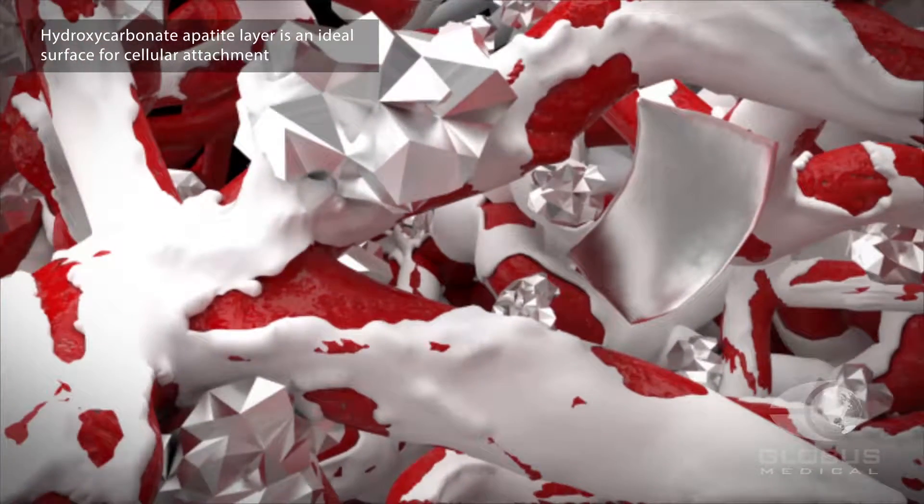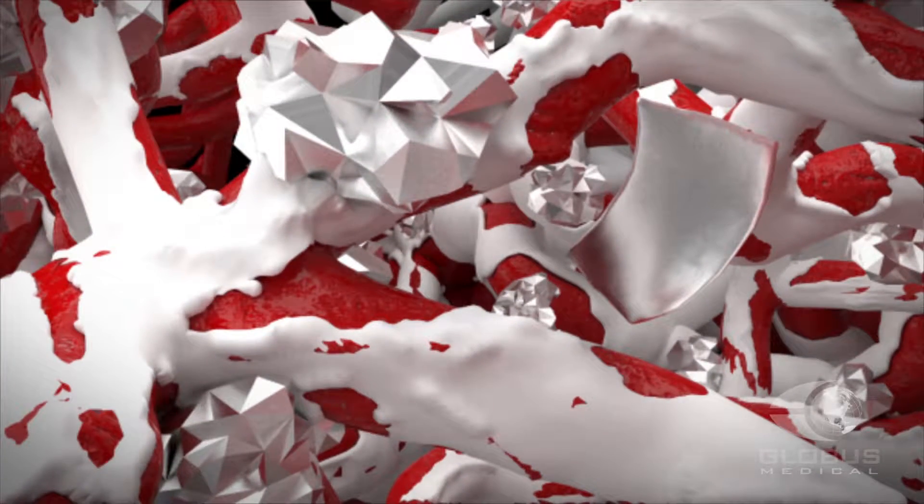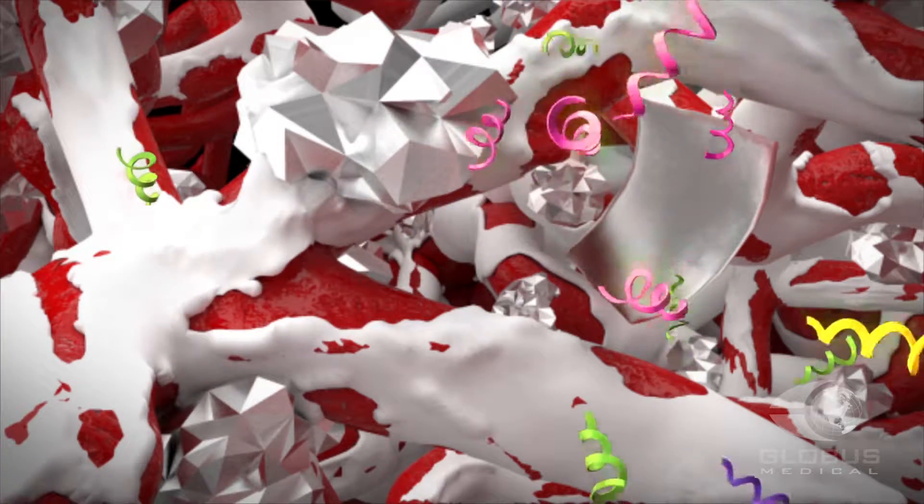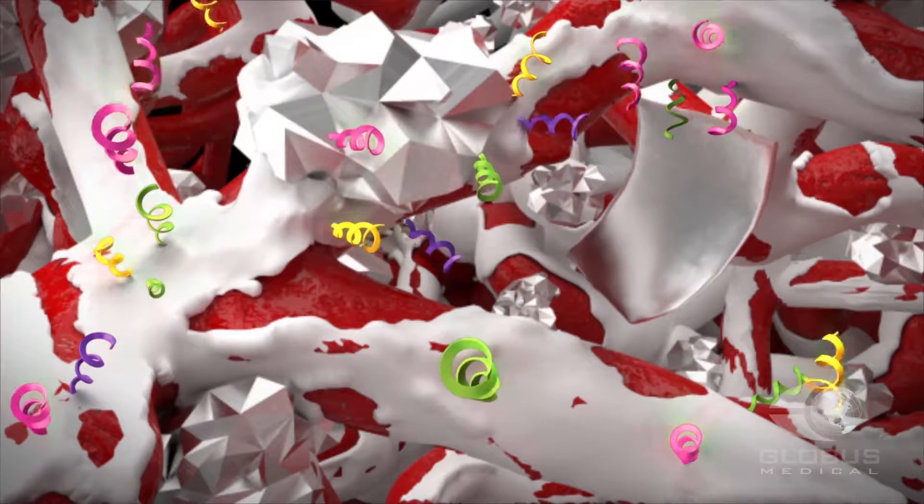The ions attract osteoblasts to the scaffold and activate increased protein production, including growth factors that stimulate osteoblasts.